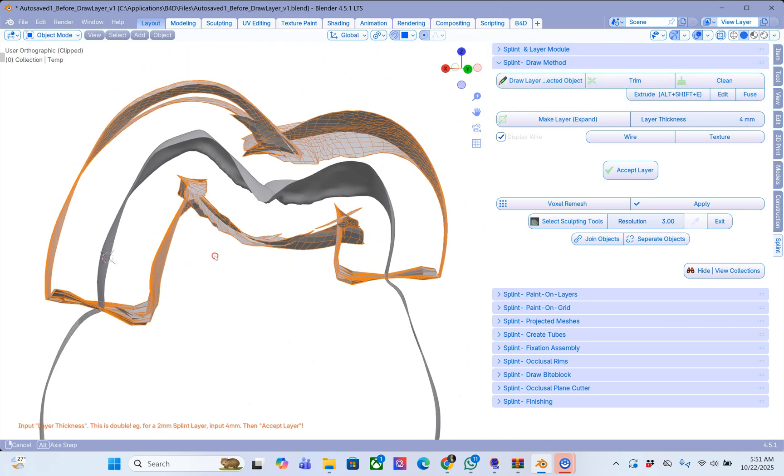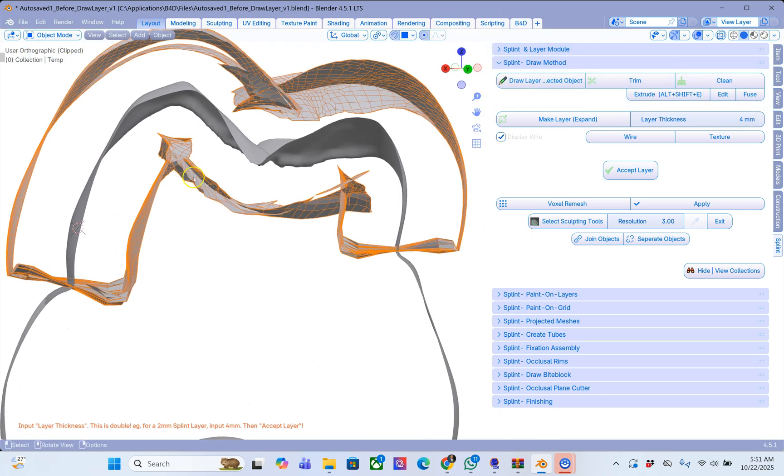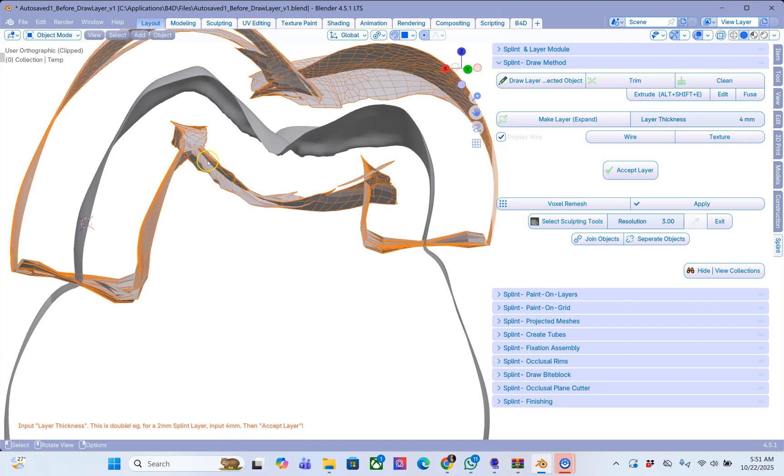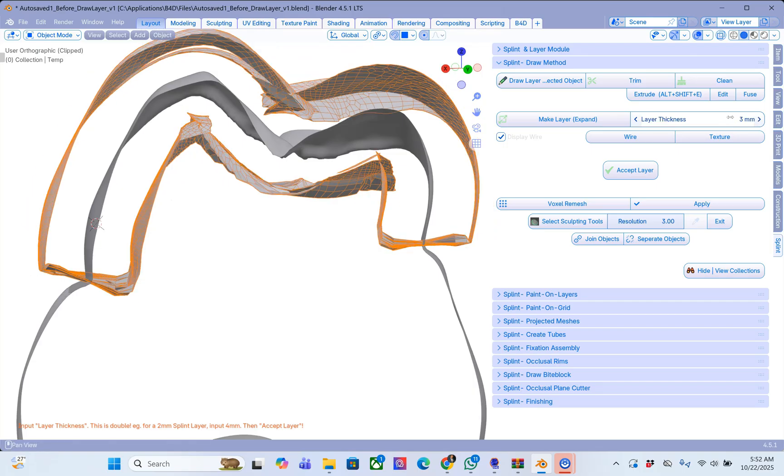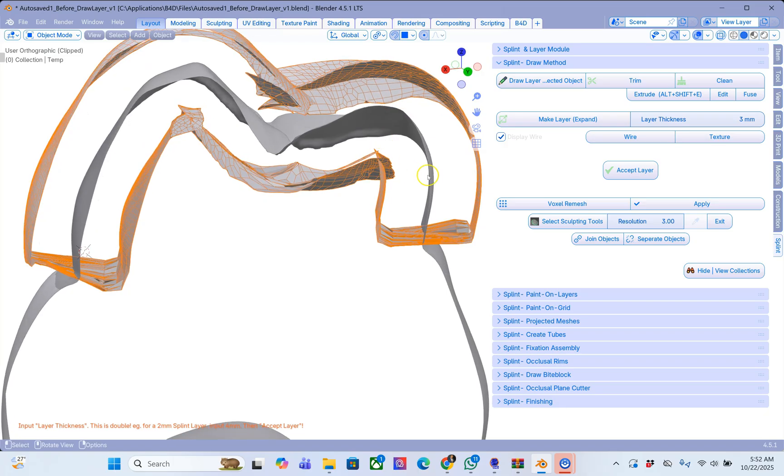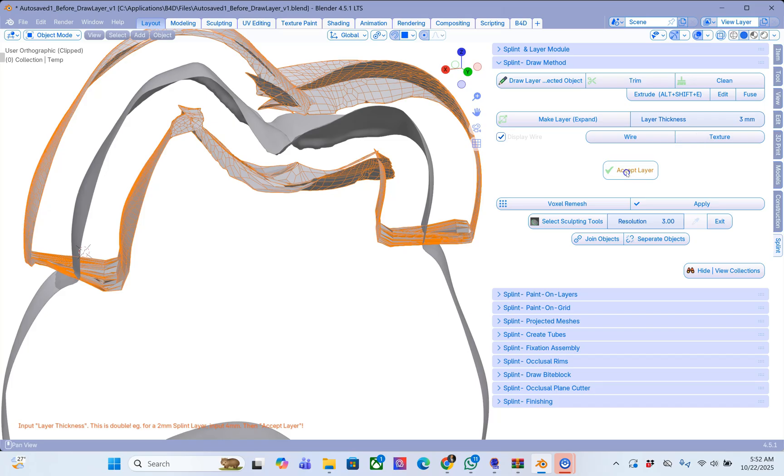Alt B to check and we can then estimate. This mesh structure is not very good, but we don't want it to penetrate this deep. No need. The default is 4mm. Let's put this at 3 which is 1.5mm penetration into your denture. Then here you can put wireframe to understand and see how this works. And then we are going to accept this layer.